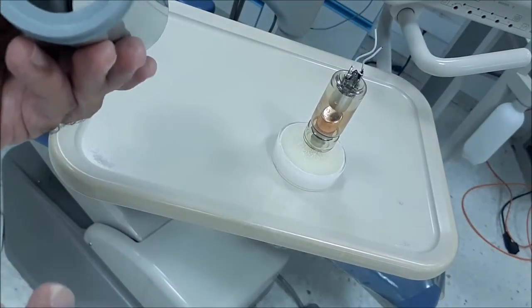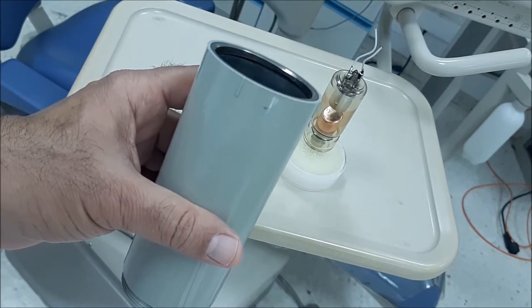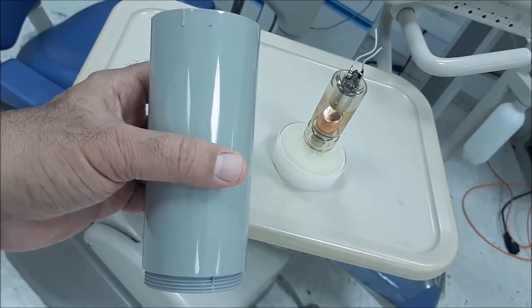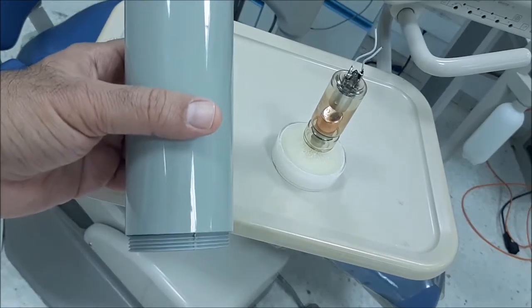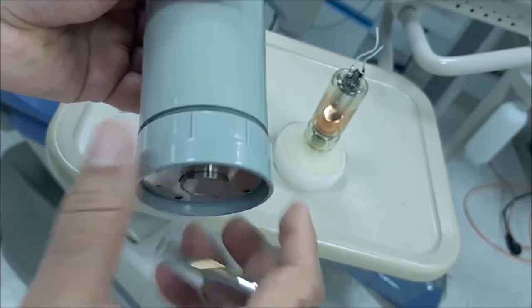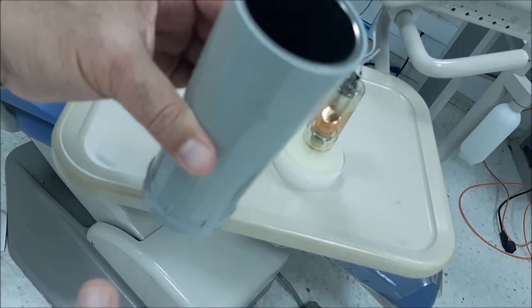This is the PID, or the position indicating device. This is a short type of device, which as I will show you on the x-ray machine, if we assemble all the components of the PID, this is how it looks.